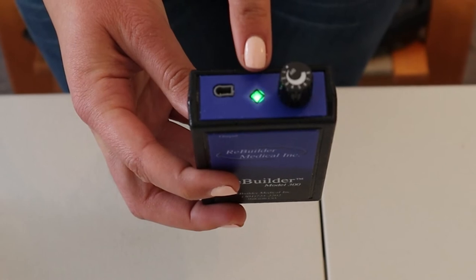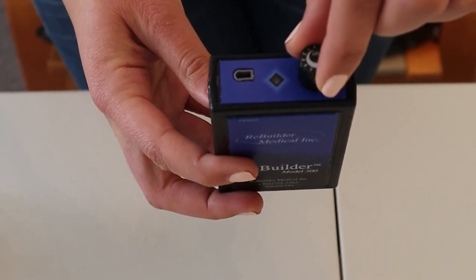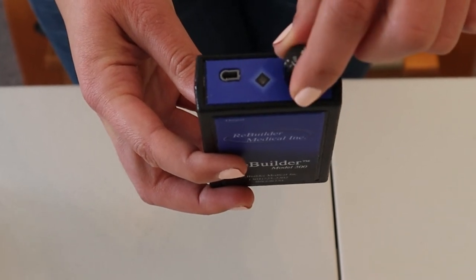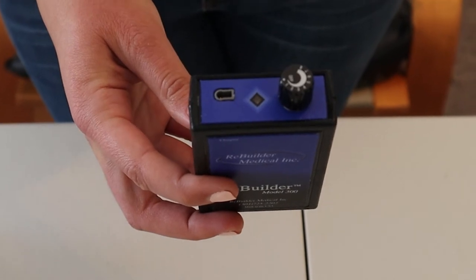When turned on, the power and indicator light will be flashing. To adjust intensity during treatment, twist to your optimal level. To turn off, twist back to the starting position and listen for the click and the light will stop flashing.